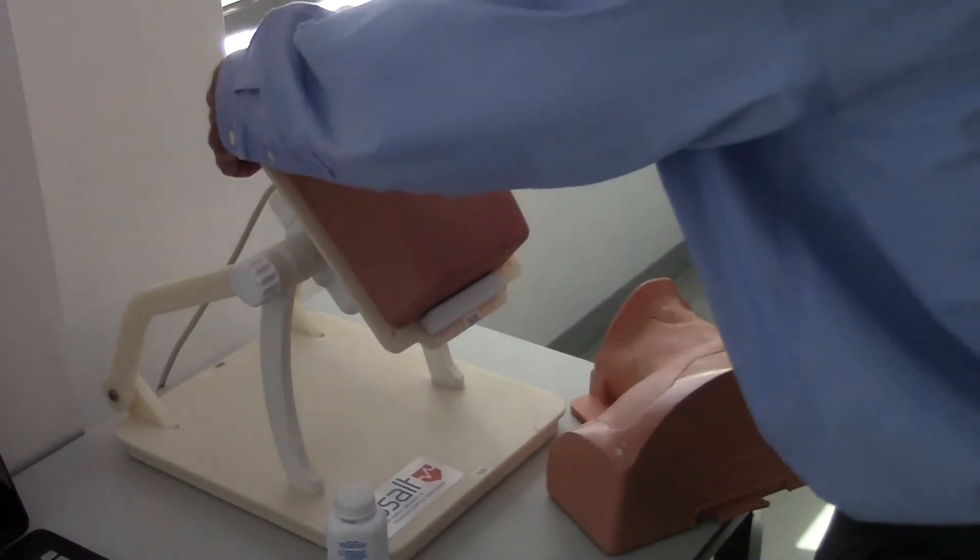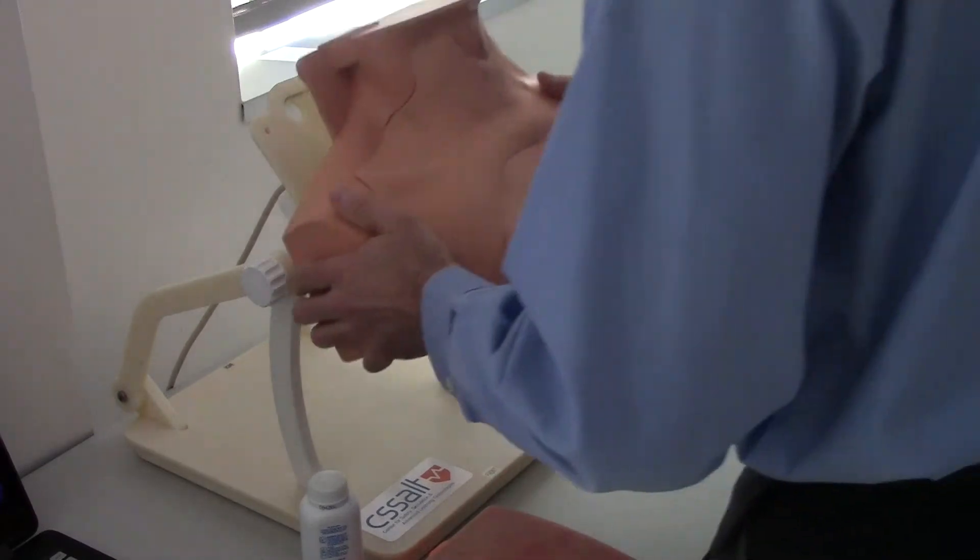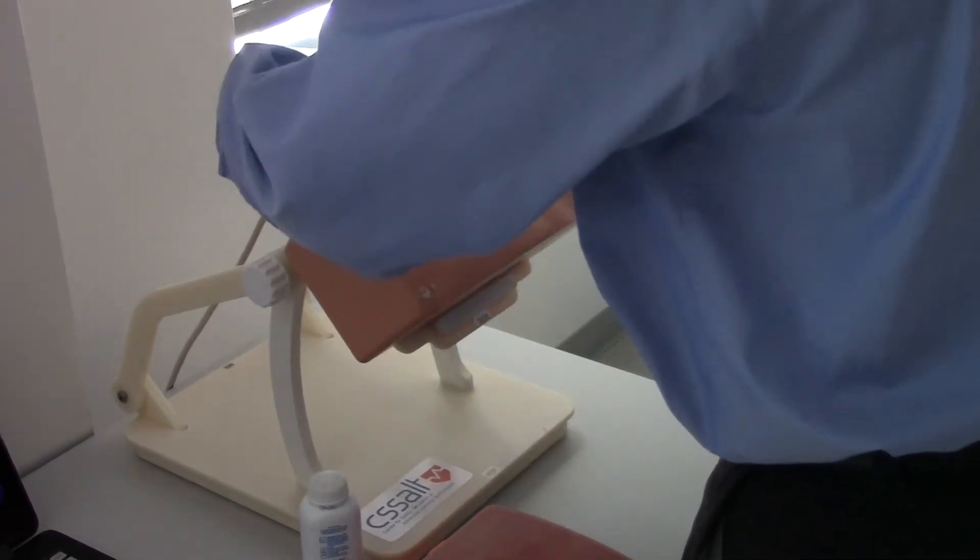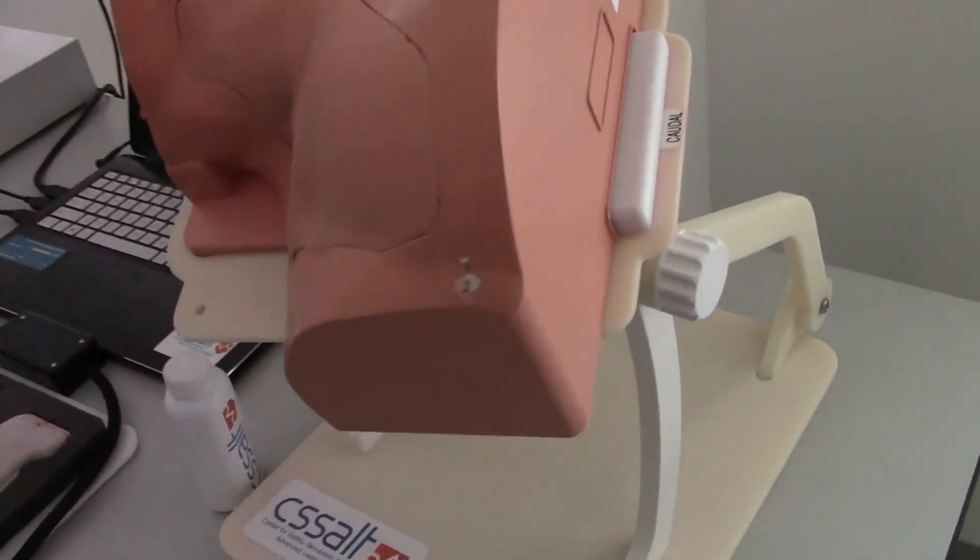This anatomical block is made to mate with the SMART platform. SMART stands for System of Modular Augmented Reality Tracked Simulators. The simulation shares the same components with our other mixed reality simulators.